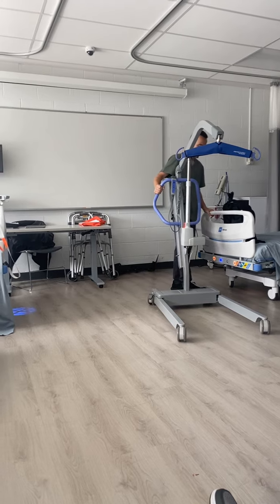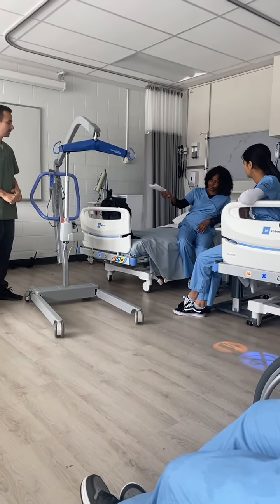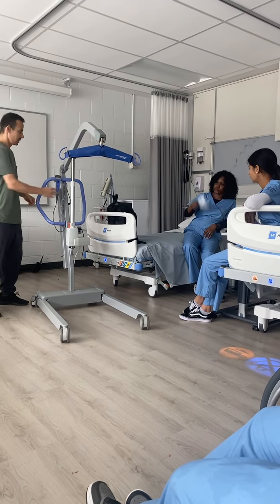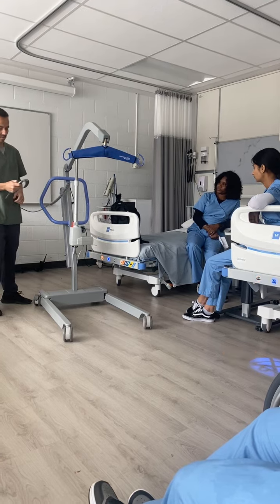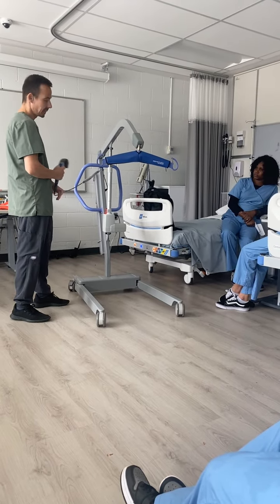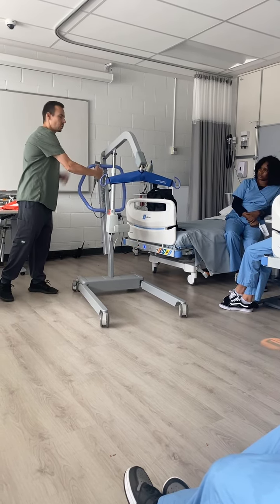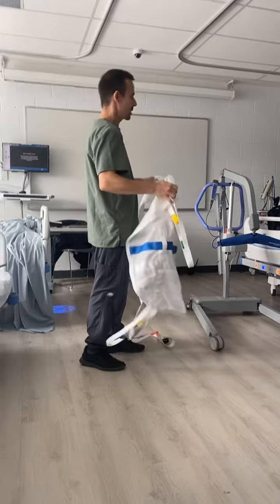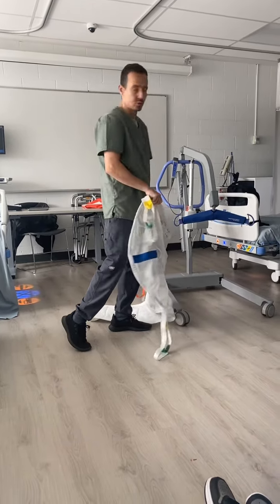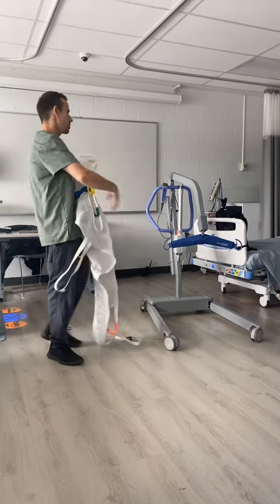I have a question. Like you said, assuming the patient fell down and you were being called to pick the patient up, how does this go down and pick the patient up? It goes down quite low. Let's say the patient is on the floor, right? So you do it like a bed to chair transfer. You put the sling underneath the patient, you hook up the hooks, which we'll show in a second how we do that, and then you lift the patient onto the stretcher or the chair.